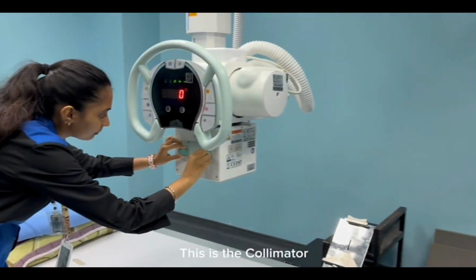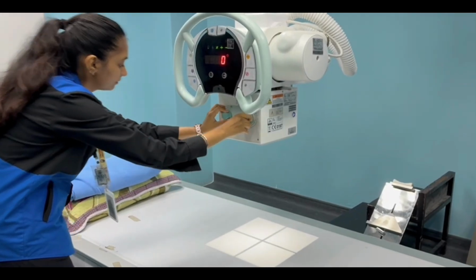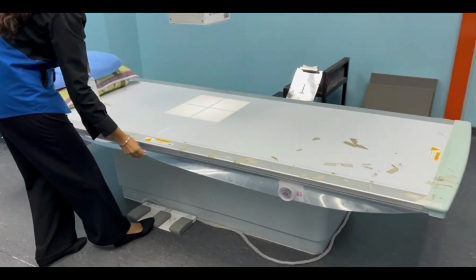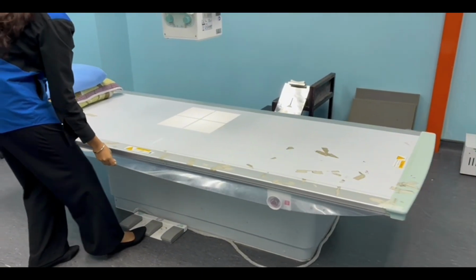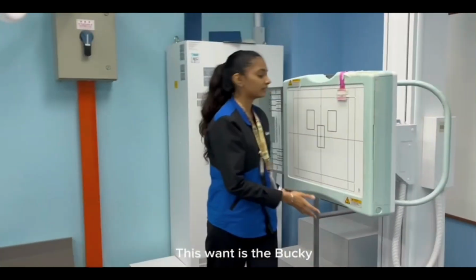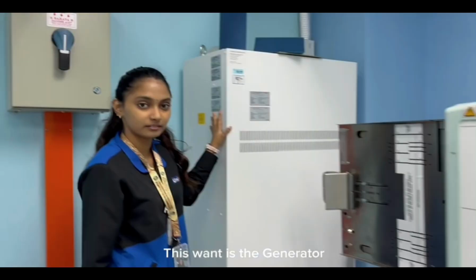This one is the collimator. This one is the table. This one is the bucky. This one is the generator.